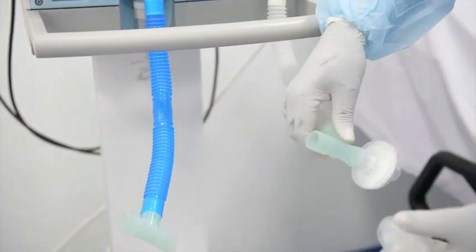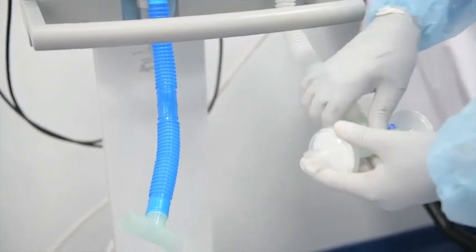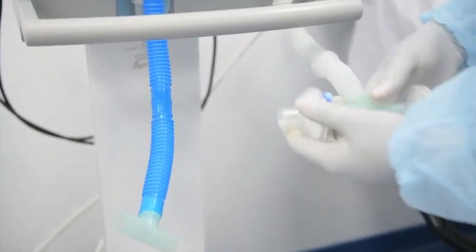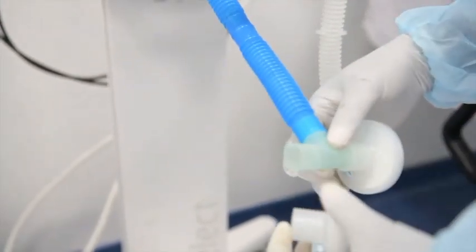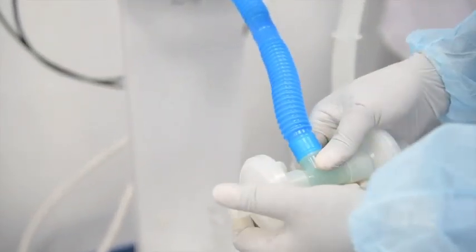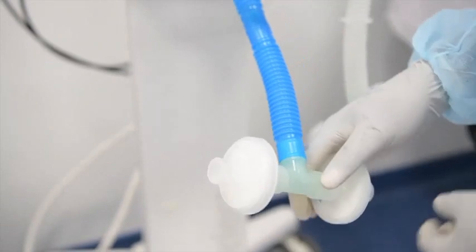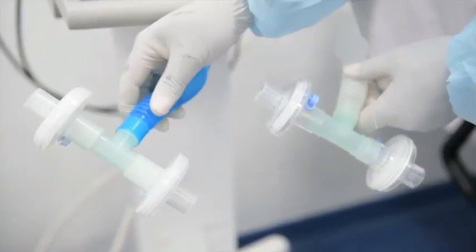So for inspiratory limb, one patient will need to get bacterial filter and the other patient will need to get bacterial filter for the second patient.